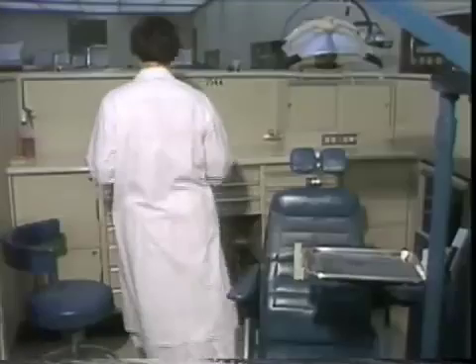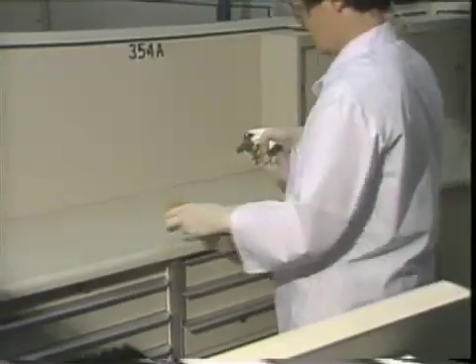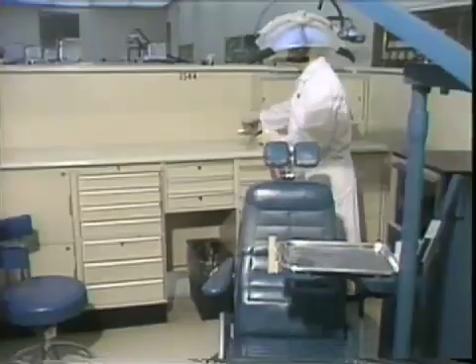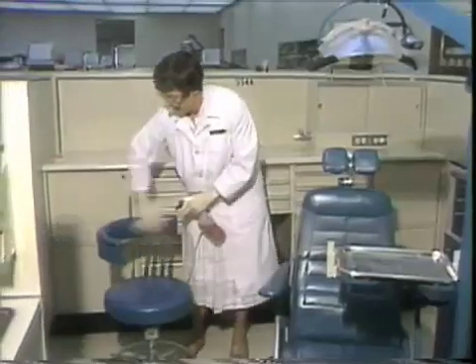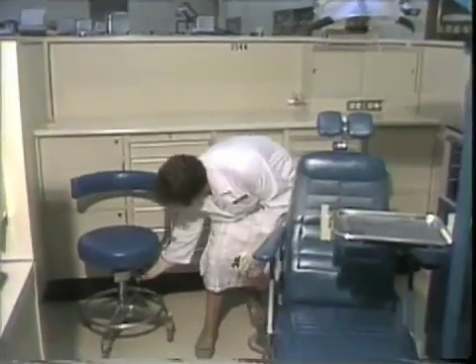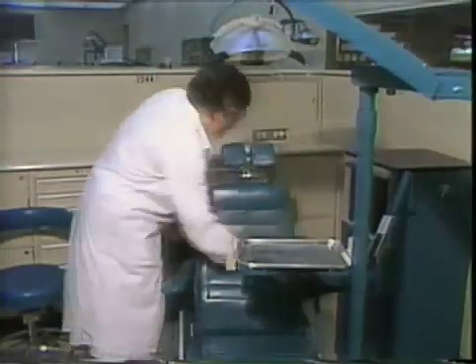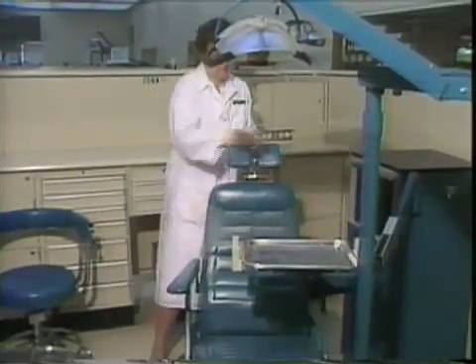Before seating a patient, the countertop should be sprayed with a surface disinfectant and wiped with a saturated paper towel and let stand moist. On the operator's stool, wipe the abdominal rest and adjustment with a saturated paper towel and let air dry. Wipe the chair adjustment lever. Spray the dental chair with the surface disinfectant and wipe with a saturated paper towel. The chair controls, the plastic that covers the control, the headrest and handle, the armrest, and the back of the armrest brace should also be wiped down.